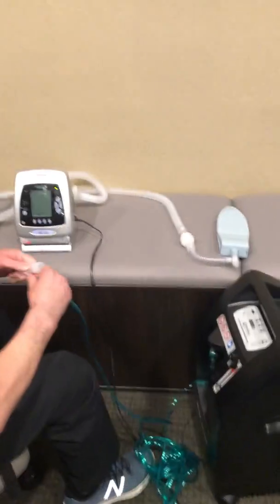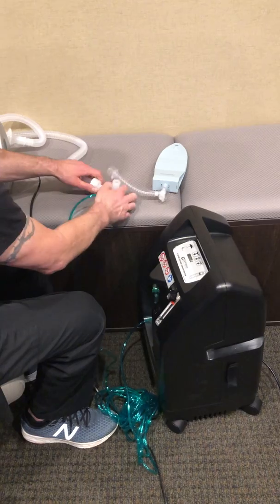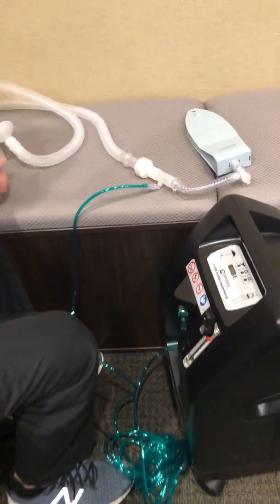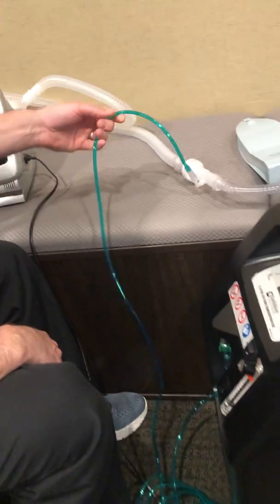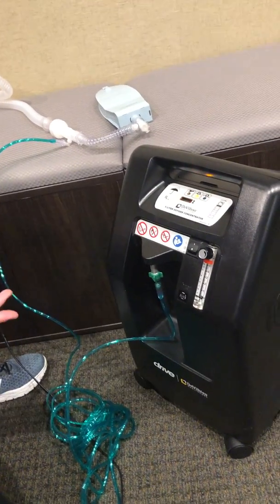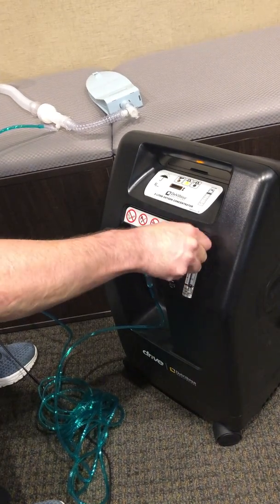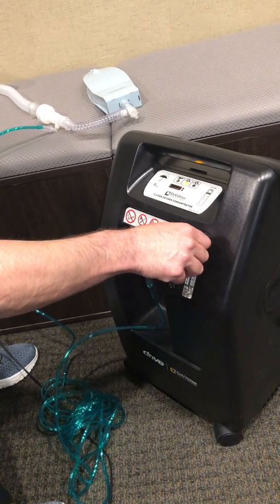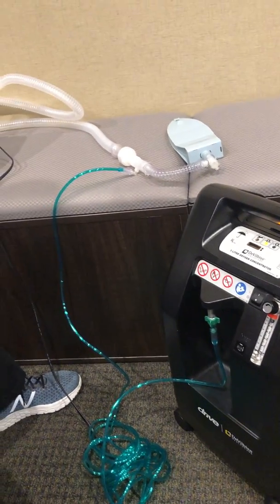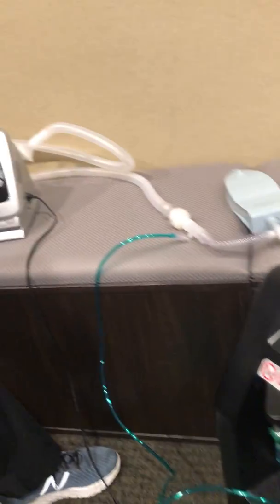Lots of these patients will need oxygen. For this setup, I'm going to tie the oxygen in as close to the patient as possible. There are different ways to do this — you can bring it in closer to the vent, but in this case I want to do it closer to the patient. I'll turn our concentrator on. In the hospital you could use a flow meter to do the same thing, but here in our office we're using this concentrator. And that's your invasive setup for a patient using the Vivo 40. Thanks.